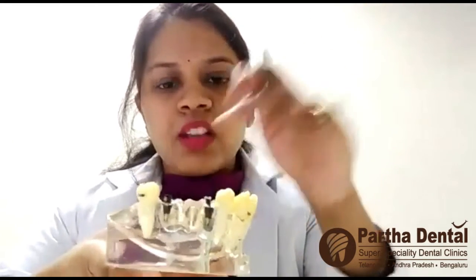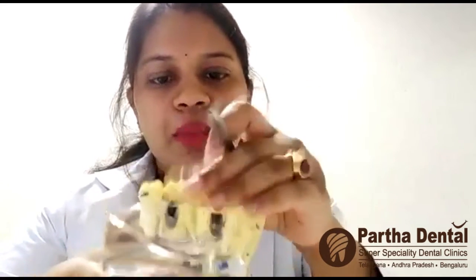There are even other options when there are more than 2 teeth missing. For example, this is an area where 3 teeth are missing. So we have placed 2 implants in the same way, and we have placed a fixed partial denture — nothing but a bridge. But this bridge is an implant-supported bridge. You can make out there are 2 implants here, and on top of them we have given a bridge.